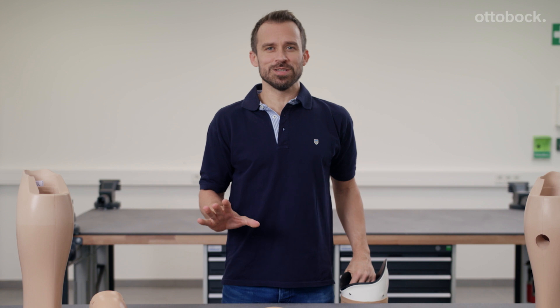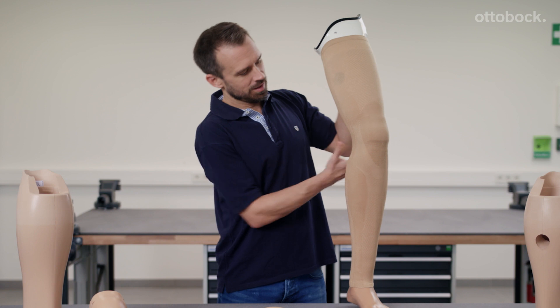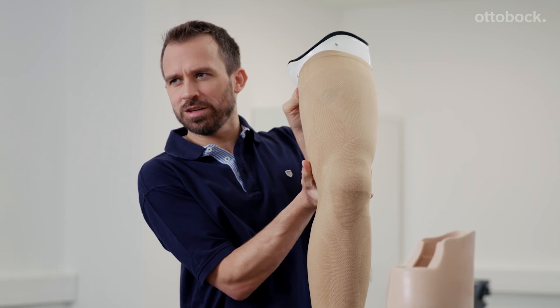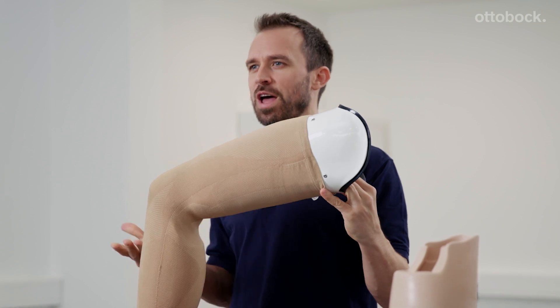What's great about this is that the functional knee part works in harmony with the knee's function, permits the use of the rotation adapter, and also results in a knee area that looks natural while sitting.